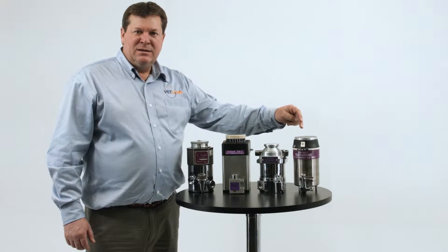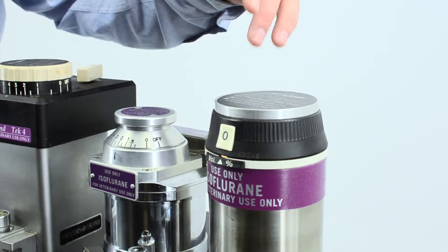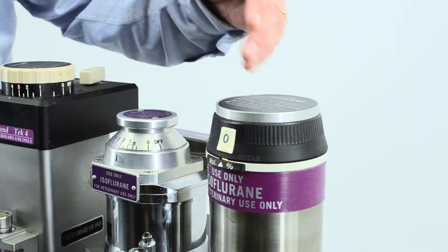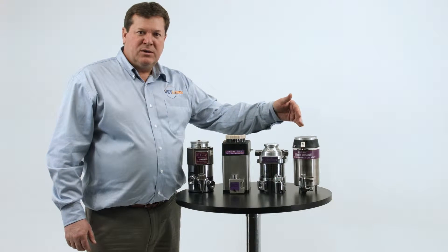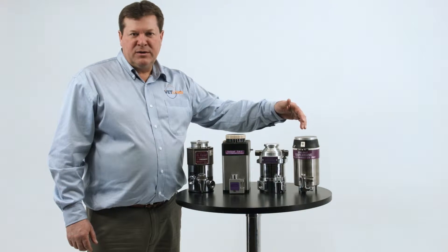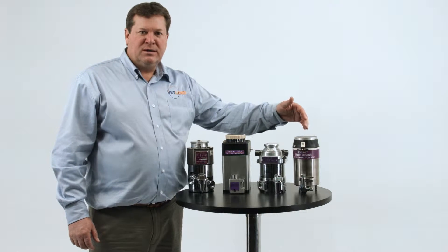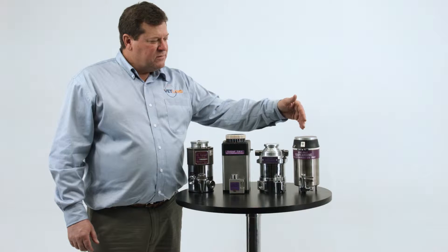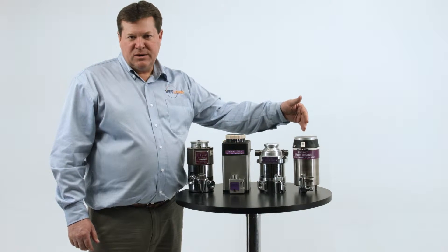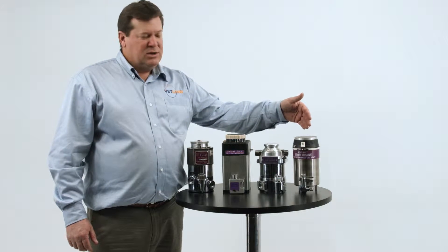The D-19 uses a felt type wick material and there are no small strips or bellows. It's two huge pieces of metal that expand and contract at different rates based on temperature. Therefore, this vaporizer is calibrated for life and it has a 10-year warranty.